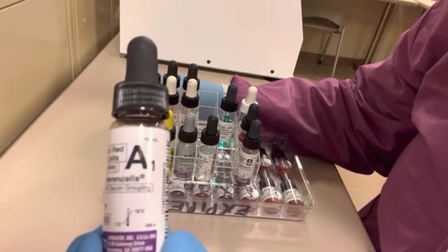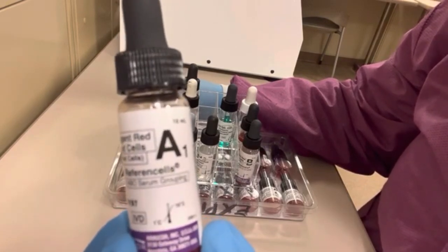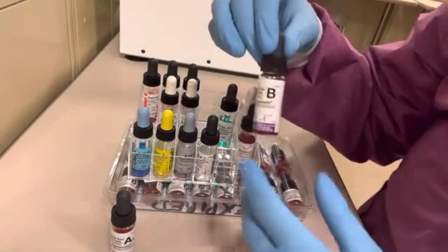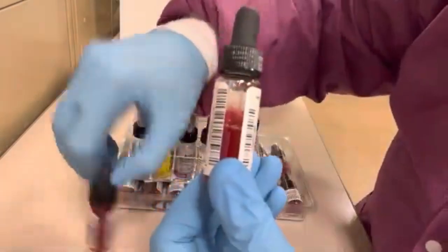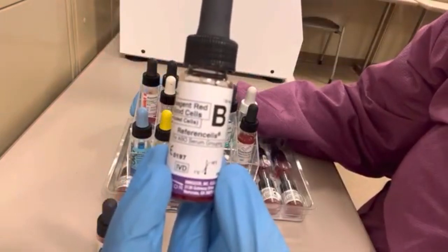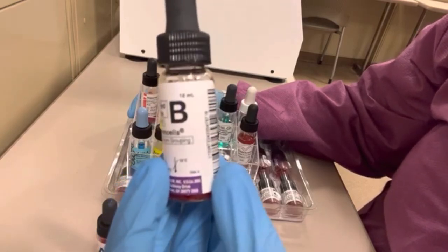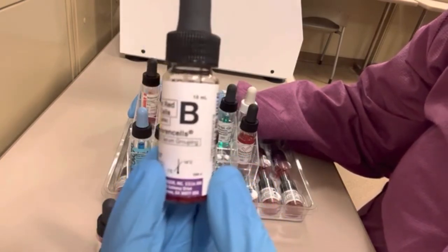The A1 cells reagent is used for detecting anti-A antibodies present in a patient's plasma, used in the reverse or back typing part of ABO typing. The B cell reagent also contains red blood cells and is used for the detection of antibodies towards B antigens in a patient's plasma — so if a patient's plasma agglutinates with this reagent, they have anti-B antibodies present.